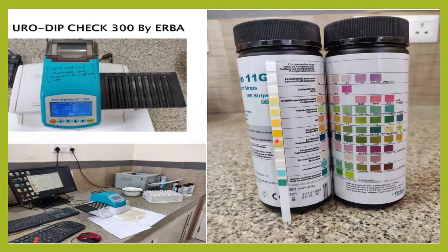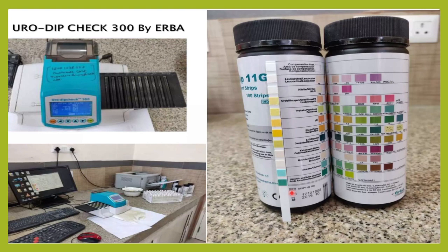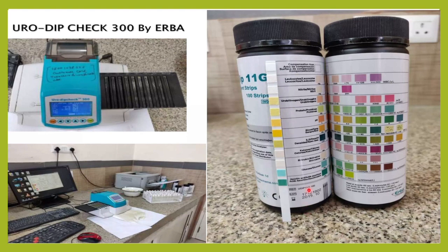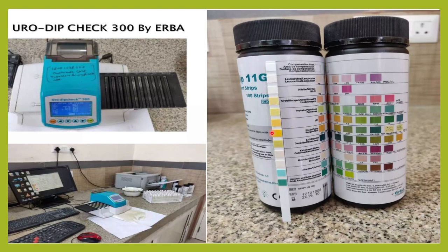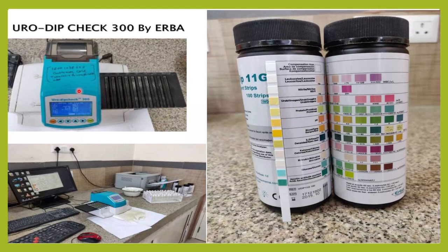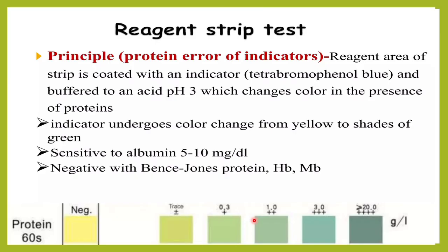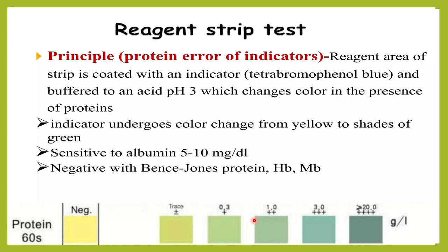The commonly done test is the dipstick method. In routine urine examination, reagent strips are used in the majority of labs. This is a semi-quantitative way of measuring proteins. There are also automated machines used to read these reagent strips, by which we can comment on the protein concentration in the urine.